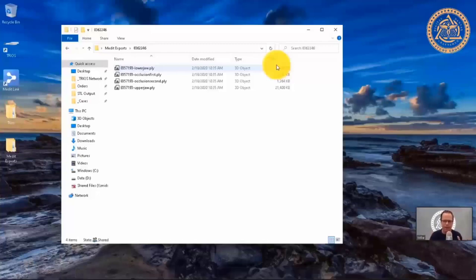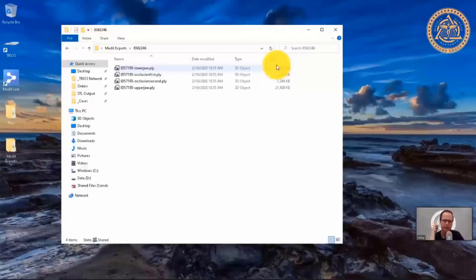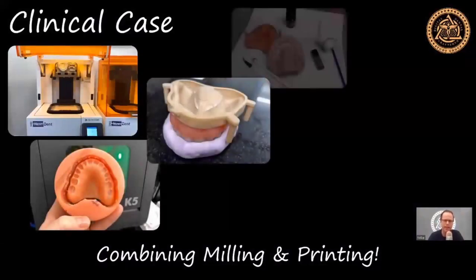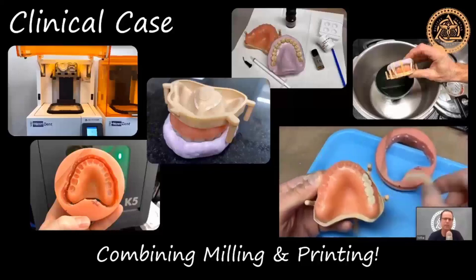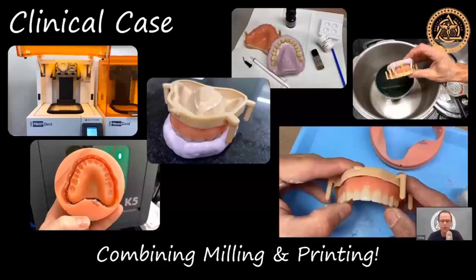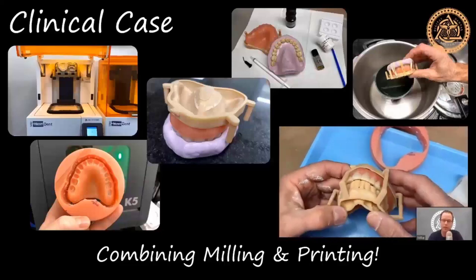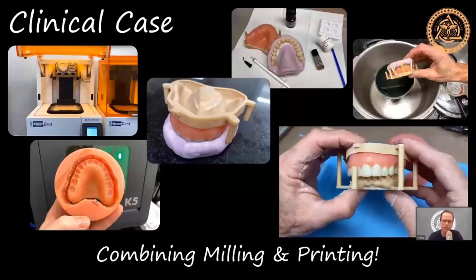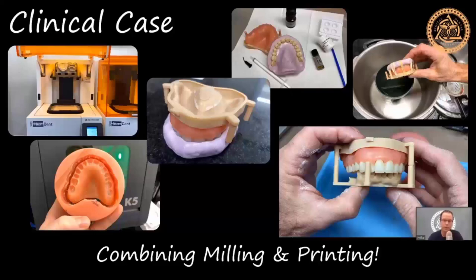The goal of this patient was to digitally design in ExoCAD: 3D print the teeth and mill the base — a combination effect. Here's my technician Chris, who is a CDT, working with me in my laboratory to finish it. ExoCAD has a neat digital denture feature where you can do a model builder procedure and check centric and vertical position during processing.